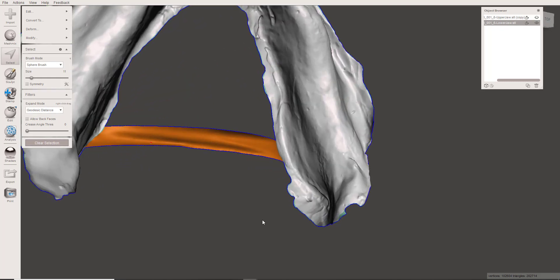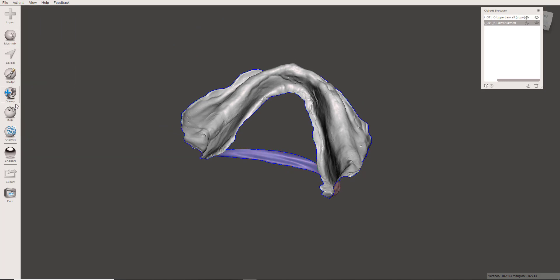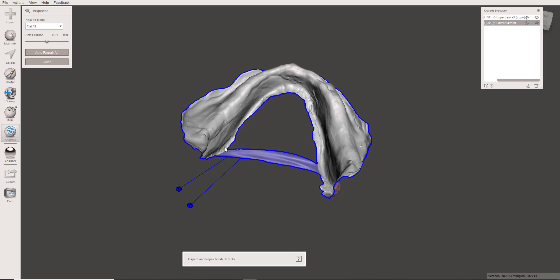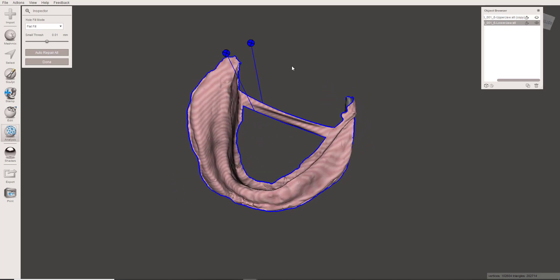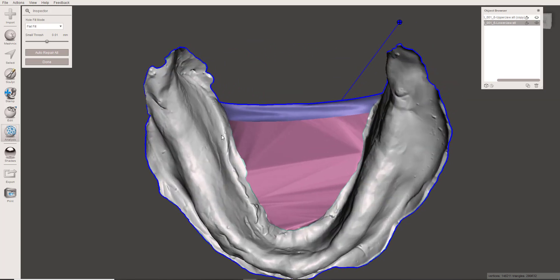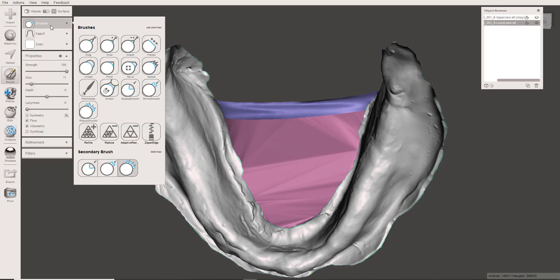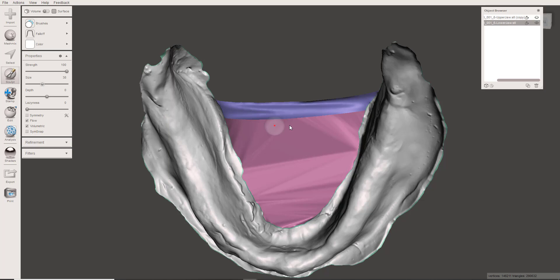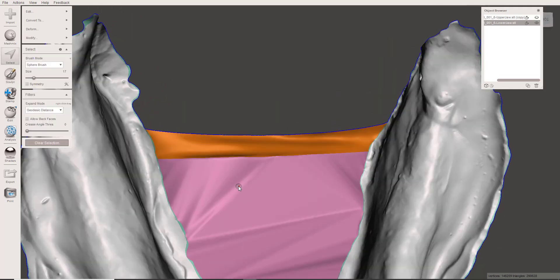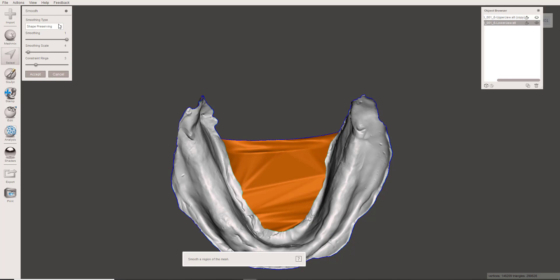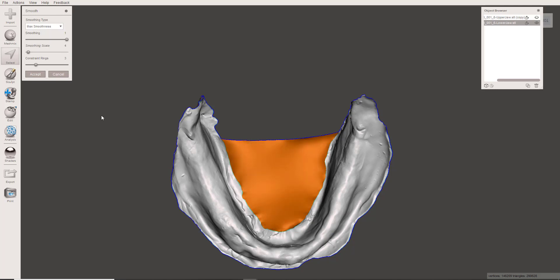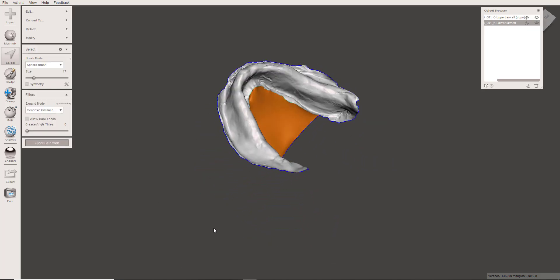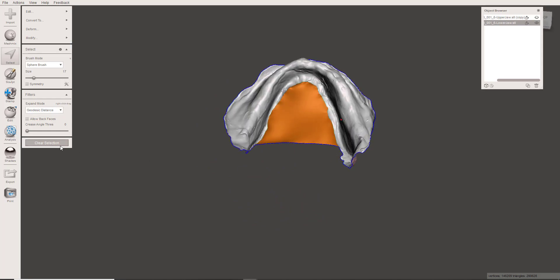So now it's going to function much more like a one-piece model, kind of like the maxillary did. You could close in this little gap by running the inspector, and it's going to highlight this area being a hole. You can just fill that in. So from here, you would just proceed just like you would on that maxillary one, and this shouldn't give you any problems once you do that step. Those areas, and go to smooth, and you could do maximum smoothness. And there you see that's a perfectly smooth lingual tongue area. So proceed just like the other one for the rest of this.